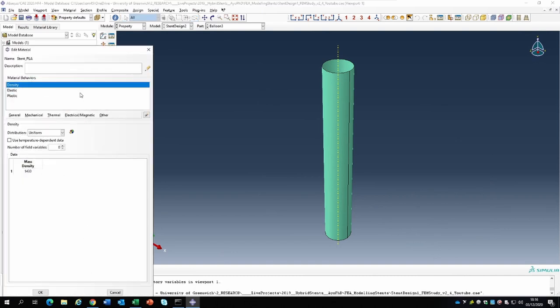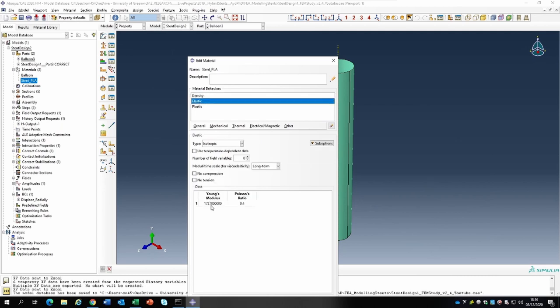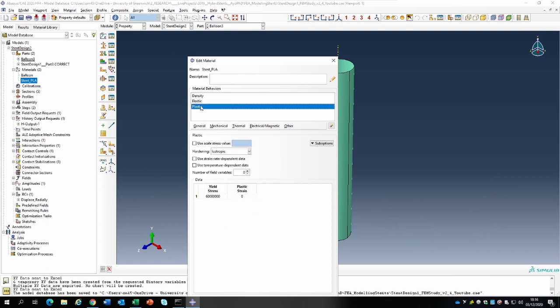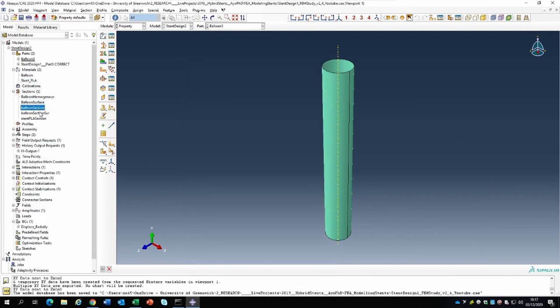The stent is a bioresorbable stent. The properties basically have a density of 1430 kilogram per meter cubed and elasticity of 1.727 gigapascal. This was extracted from an experiment I did with my students - a tensile test on a dog bone specimen. The Poisson ratio for most polymers is around 0.4, so we assumed that. The yield stress, also extracted from our own experiments on a PLA sample, was 60 megapascal.